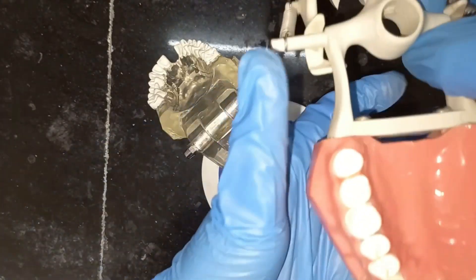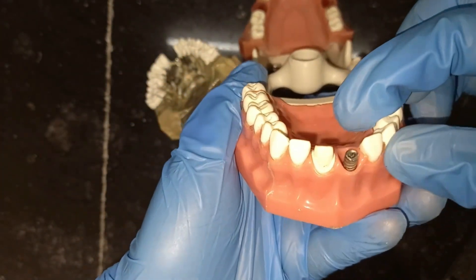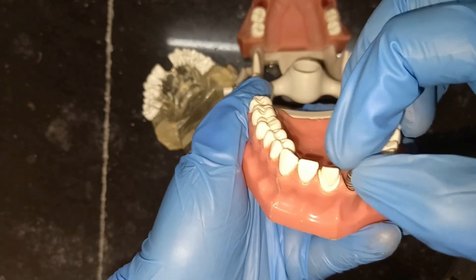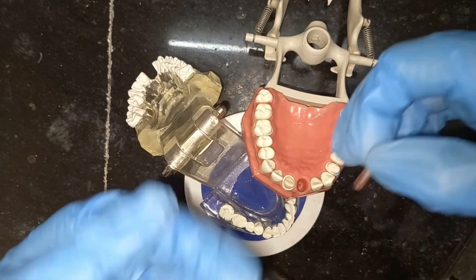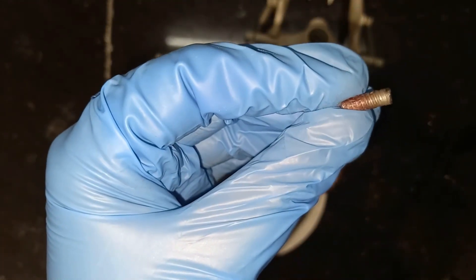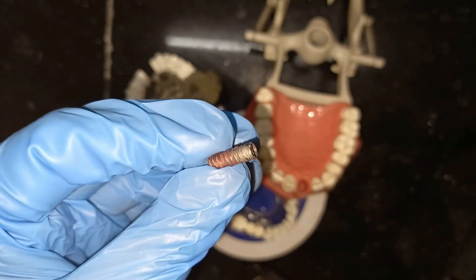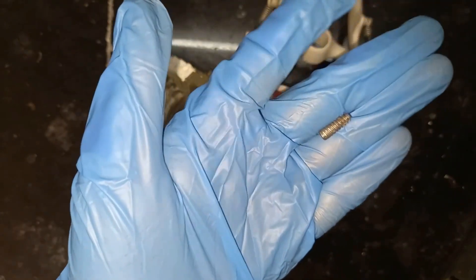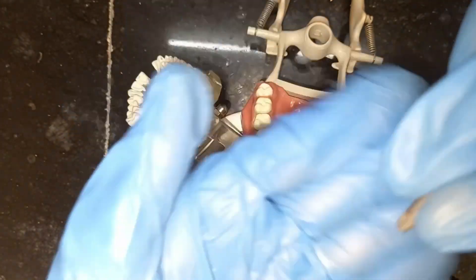So what is an implant? Basically it's an alloplastic material, meaning it is made up of titanium and has a coating over its surface which is hydroxyapatite. In layman's terms, you can say it mimics the root — it is similar to the root of a tooth.